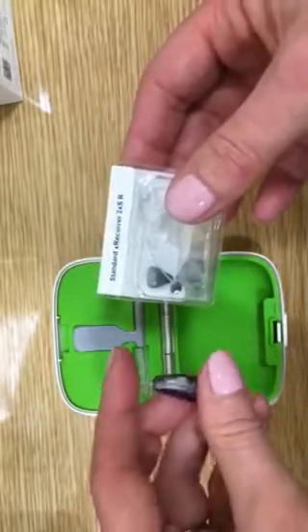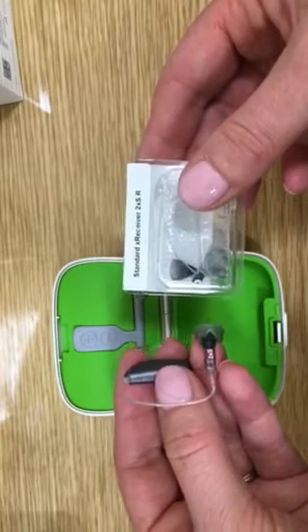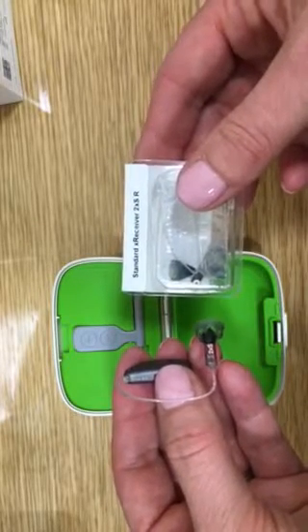When changing receivers, always do one at a time so that we don't accidentally put a right receiver on a hearing instrument that's been programmed for your left ear.